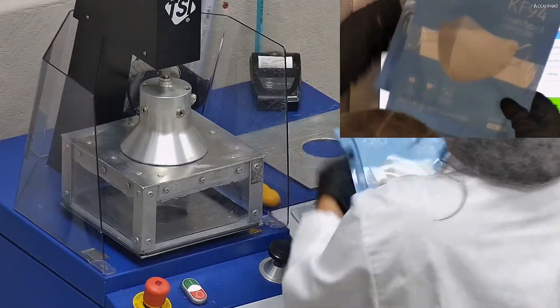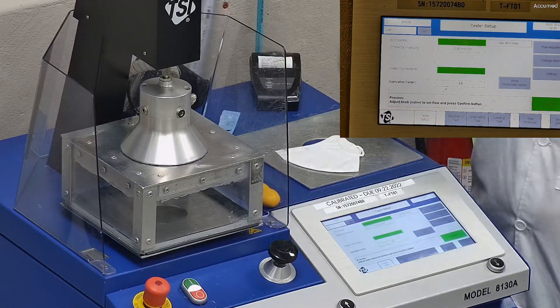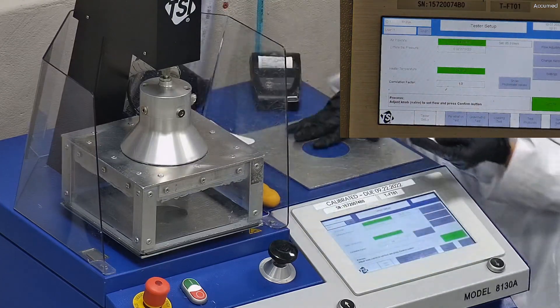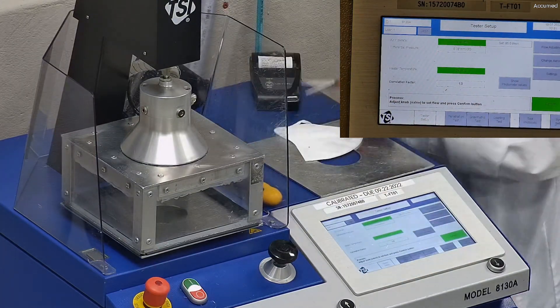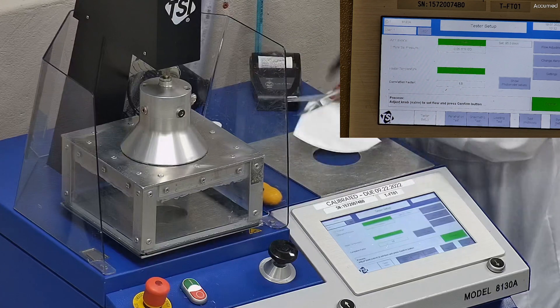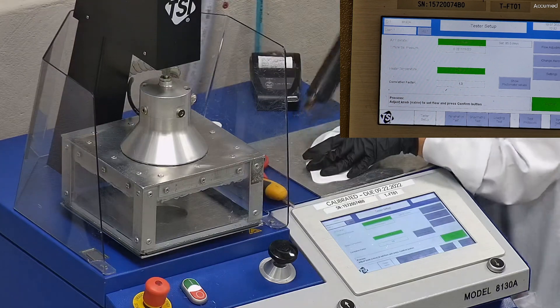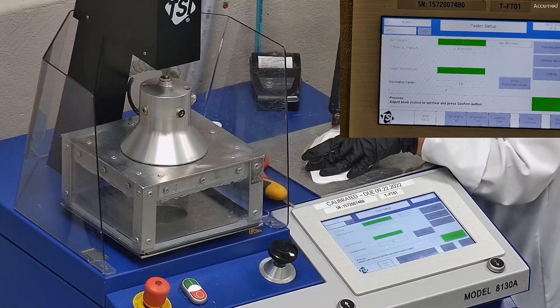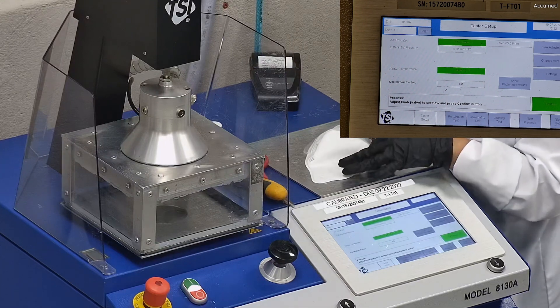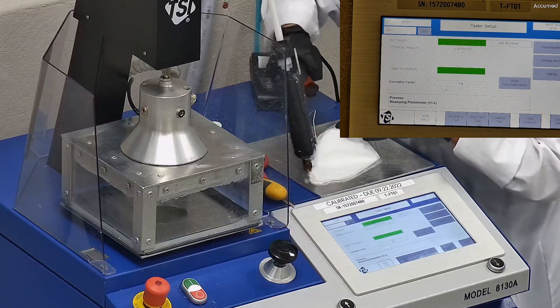We're going to see how these test on our TSI machine, testing both filtration efficiency and pressure drop. This is our TSI machine, model 8130A, which is the same filtration testing machine that NIOSH uses to approve N95 respirators. Our procedure is also inspired by NIOSH. We first run a tester setup and remove the headband from the respirator before placing it onto the testing plate to ensure a proper seal. We make sure the mask is properly sealed without glue to the testing plate, then apply hot melt glue ensuring no holes or leakage around the seal. The testing plate is then attached to the frame and placed under the TSI filter holder for testing, with results displayed on the TSI monitor.